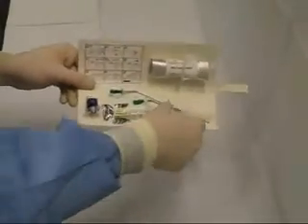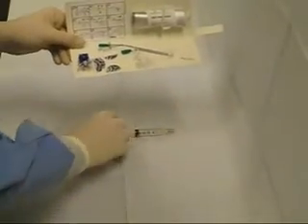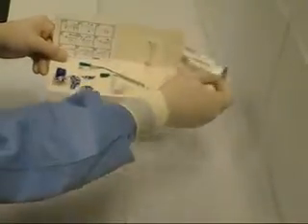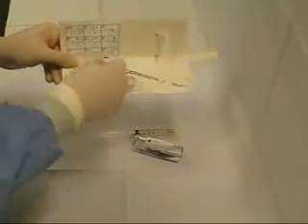Remove the necessary components from the retainer card, beginning with the syringe, the PEG pouch, your choice of cannula, and the vial adapter.